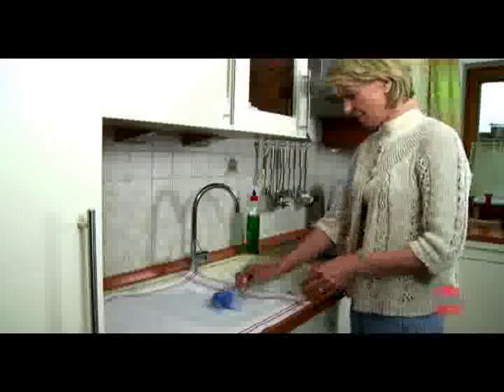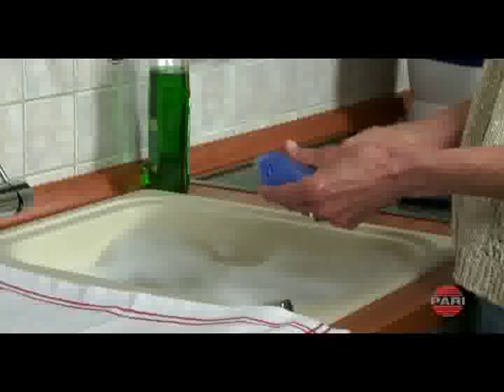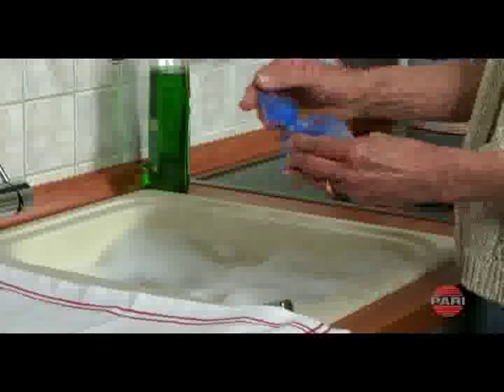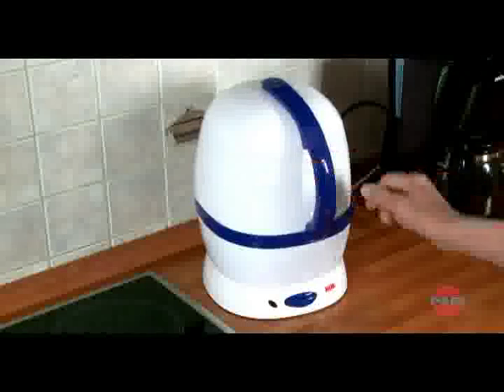For cleaning and disinfecting, disassemble the nebulizer completely into individual parts. We recommend that you wash the nebulizer parts thoroughly for about 5 minutes with warm tap water and a little dishwashing liquid. Then rinse all parts thoroughly in warm running water. Alternatively, you can also clean the nebulizer in your dishwasher. Disinfect the components either in a disinfector or by placing them in boiling water for at least 15 minutes.